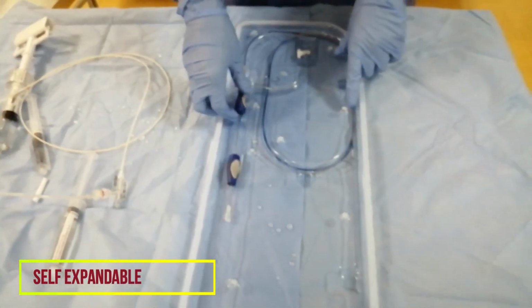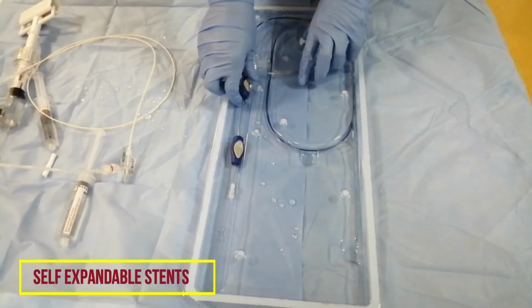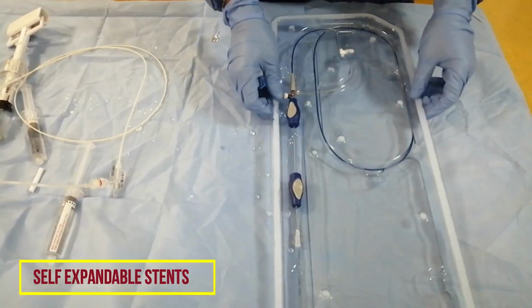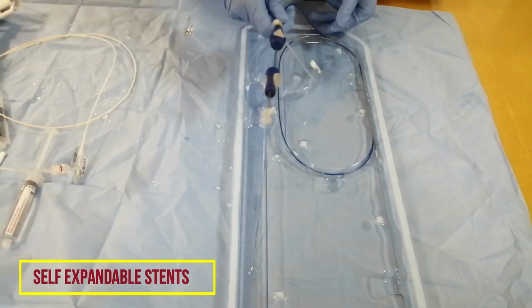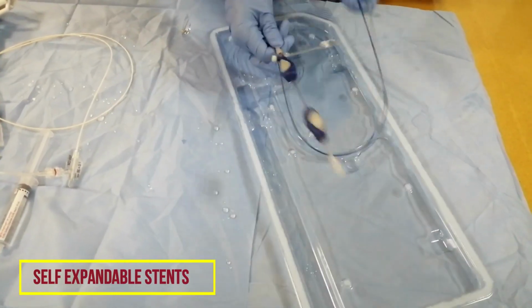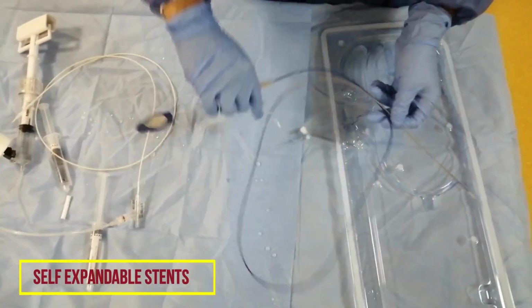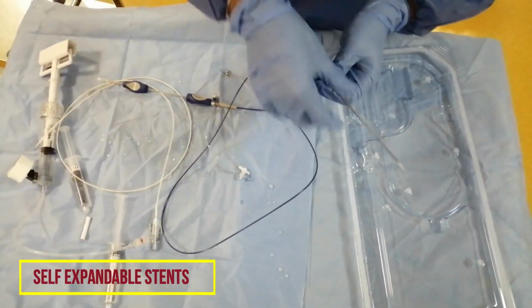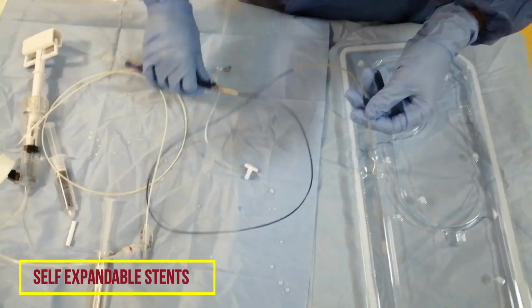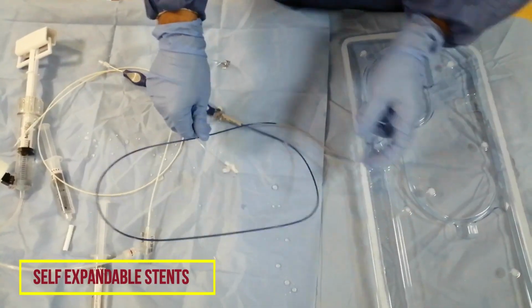The second one we are going to see is the self-expandable stent. Once you open the kit, it will look like this. Inside it is sterile, and you will take the stent outside. Now you can see the stent is like this. Over the wire we will load the stent into the vessel, and after that we have a port here to be flushed.